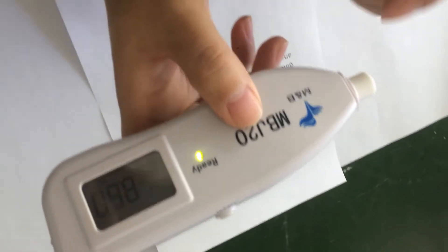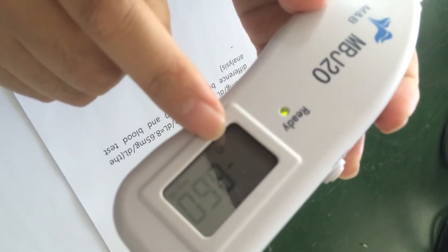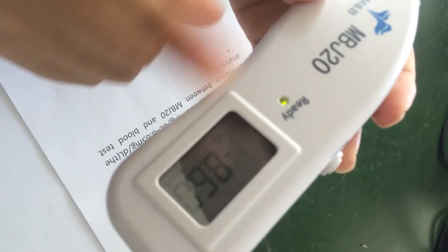Press it and relax, okay. We can see the lights are on, and there's a lock — lock confirmed — that is okay.